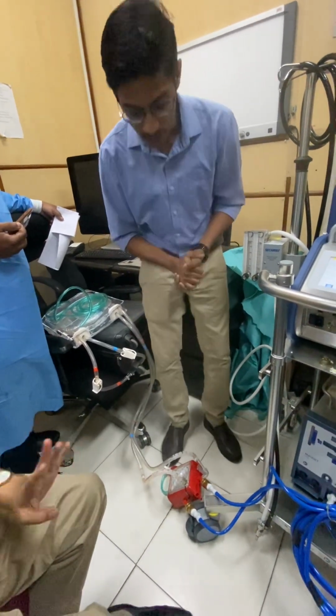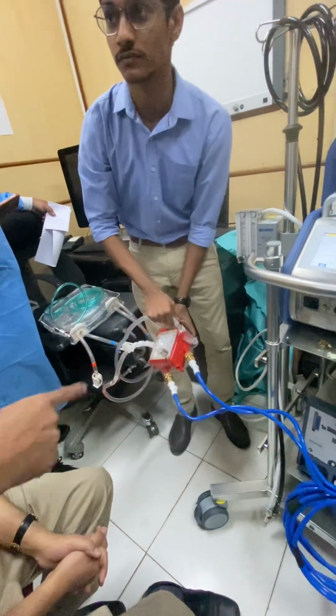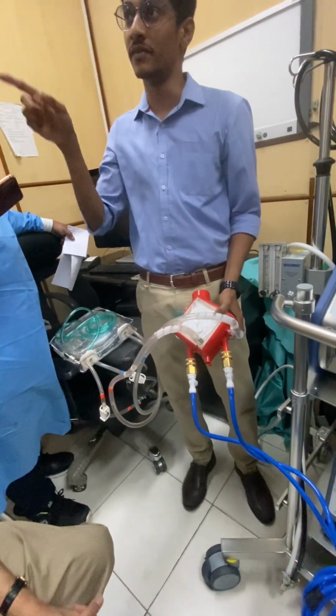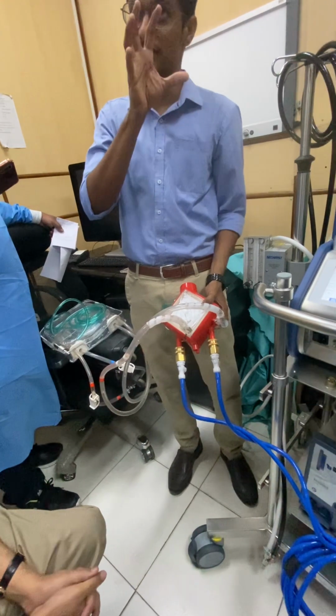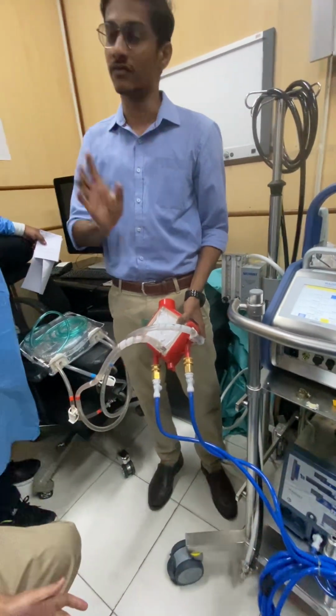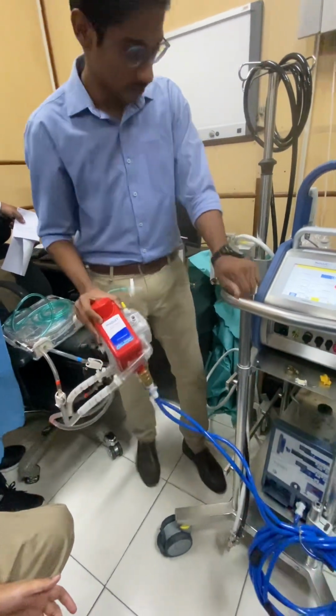So you know, ठीक है, ये कनेक्ट हो गया। अब आगे इसमें इनलेट और आउटलेट अलग-अलग है। There is no inlet or outlet issue. You just, as I said, what is the important thing is that you need to circulate a higher degree. ठीक है, अब इसको कनेक्ट कर दो.